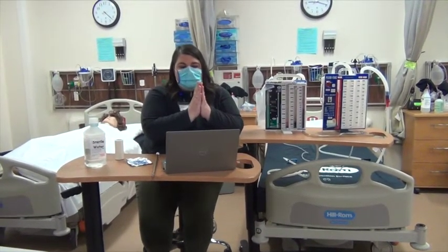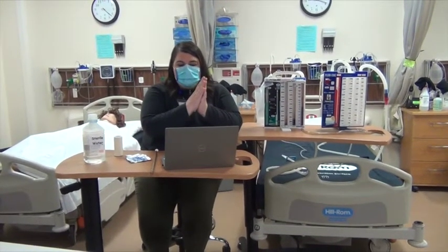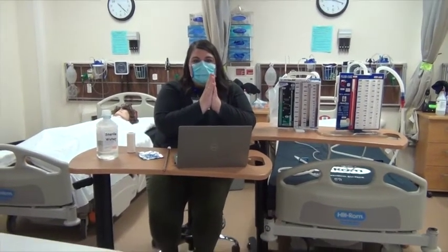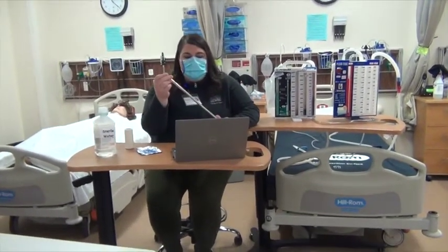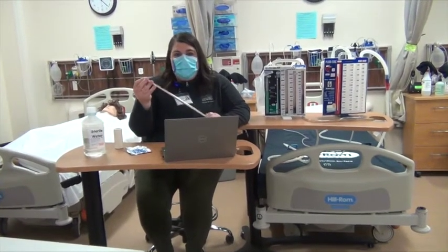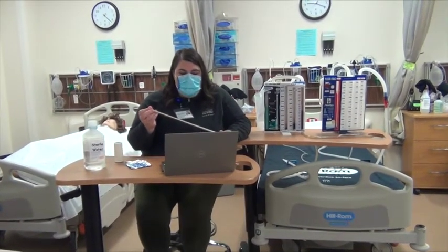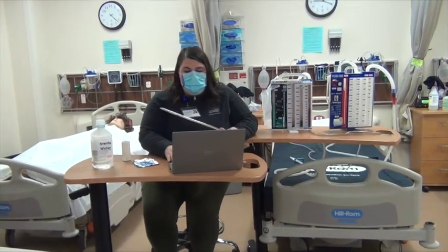What happens is if any air or fluid that doesn't belong in that space enters, it ruins the negative pressure that's inside that space, and your lungs can no longer be inflated. So the chest tube is inserted into that pleural space to remove air and fluid so that negative pressure can be restored. So you'll see this commonly after a trauma or a surgery, and this would treat a pneumothorax or a hemothorax.